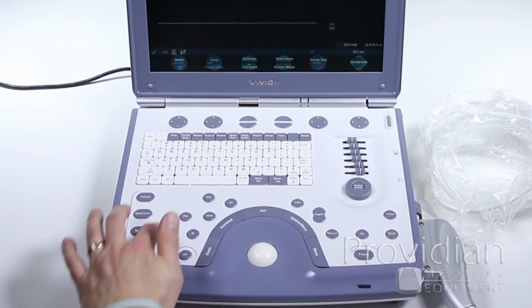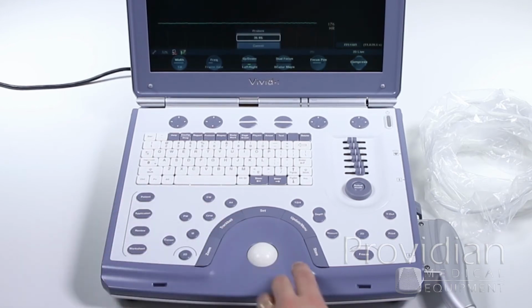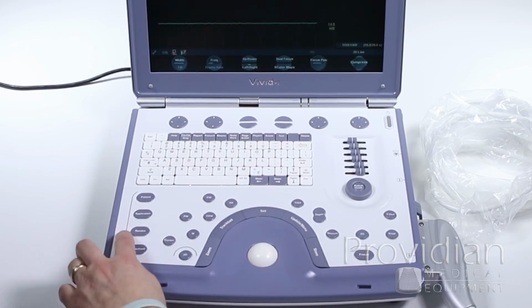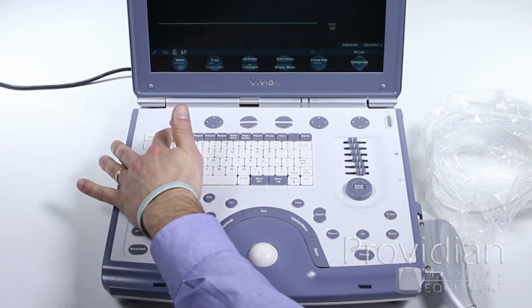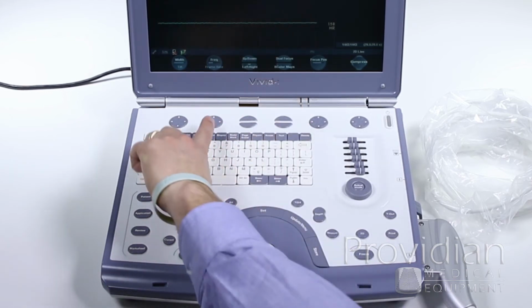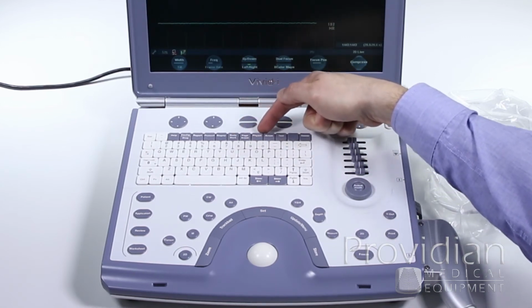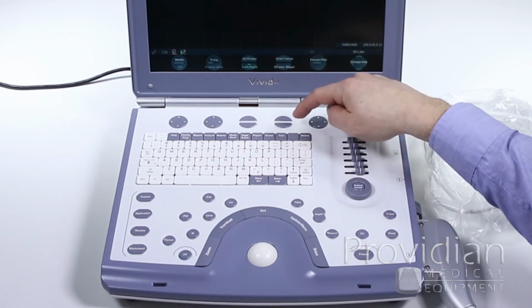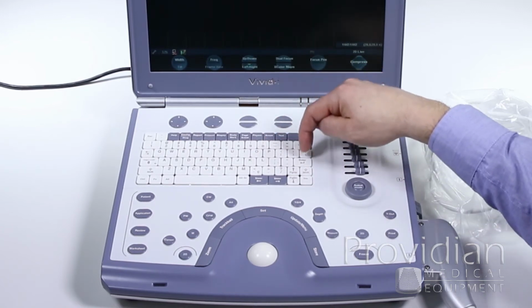Over here, we have things that we'll do mostly in the beginning and the end of an exam. We have our patient key, the application to choose the application you're going to set. So we'll get to that when we get to imaging. Review to look at the images you've stored, and your worksheet to view your report. Along the top here, we have our help menu, the config, which we already showed, another report, protocol for stress echo, biopsy, body marker, page erase to get rid of all the comments or whatever on a screen, physio for your ECG, so you can adjust that, arrow for the on-screen arrow, text for annotations, and delete to delete anything that's on the screen.